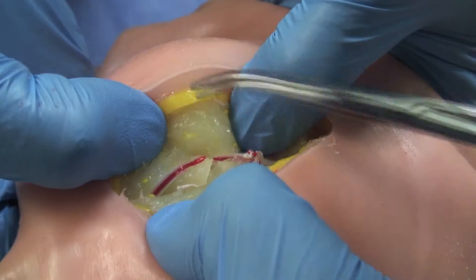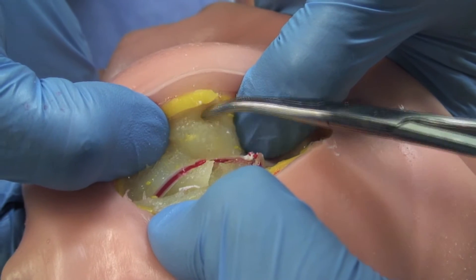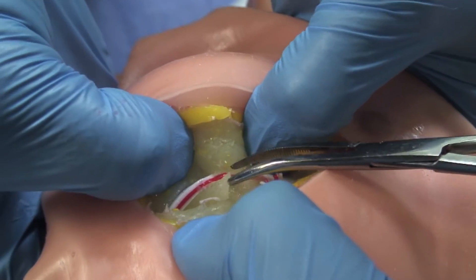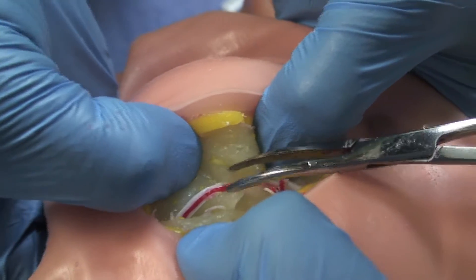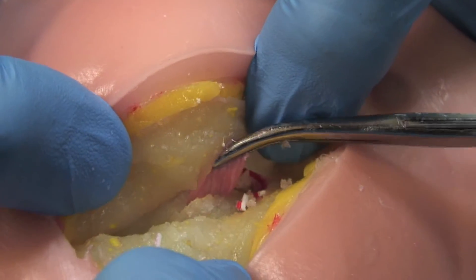Notice again the layers of skin here, including the dermis, subcutaneous fat, fascia, preperitoneal fat, and then finally the peritoneum itself.